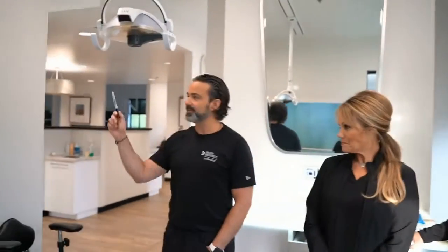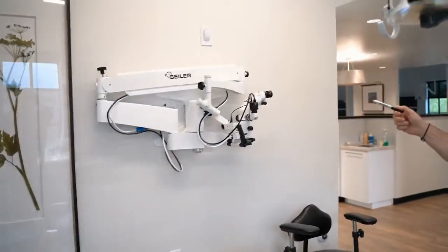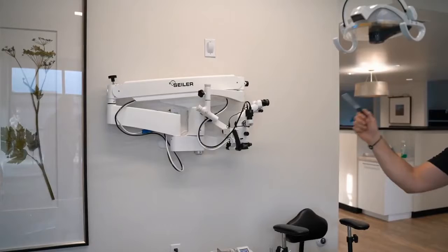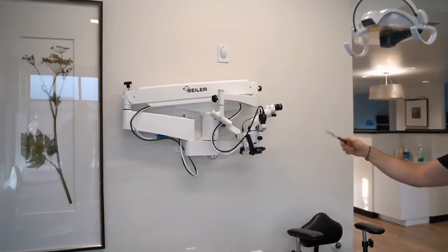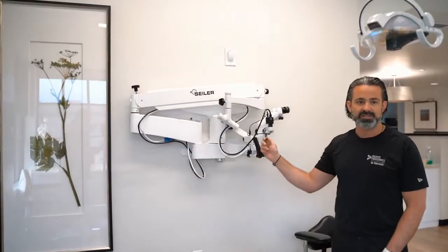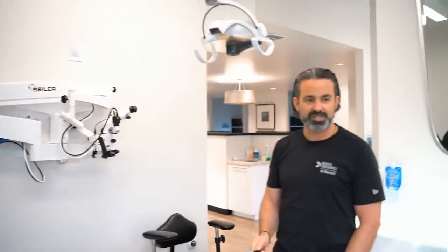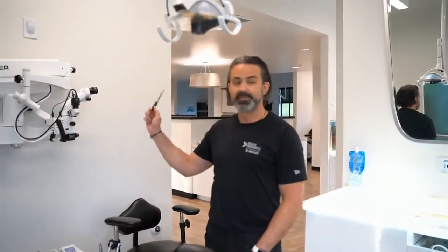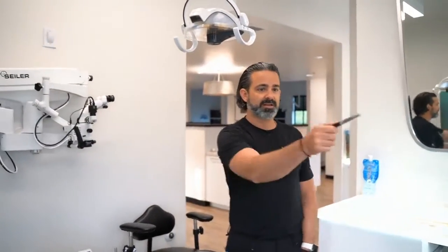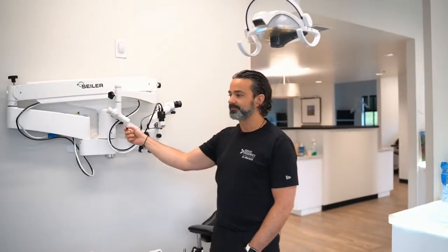All right, so first things first, let's talk position. The position of the microscope. Now, I've done a few offices throughout my career, and that microscope has actually changed positions. Right now, I have it on the right side wall of the room. So if we think like a clock, the head of the chair is 12 o'clock, and then you can do the math. That's 6 o'clock, 3 o'clock, 9 o'clock, 12 o'clock. So I'm over here at the 3 o'clock position.